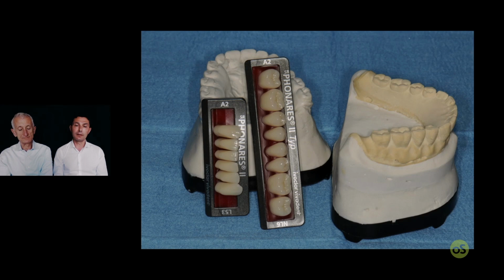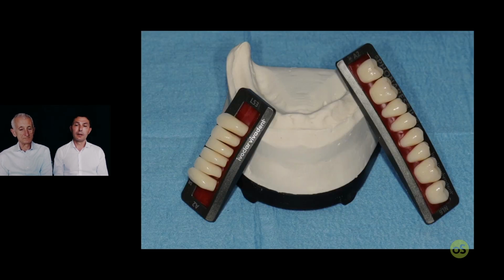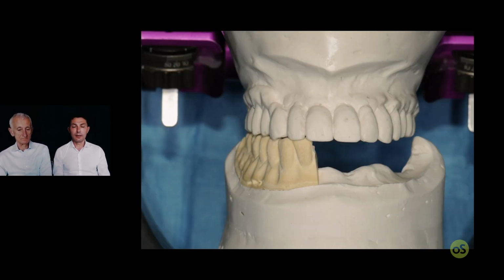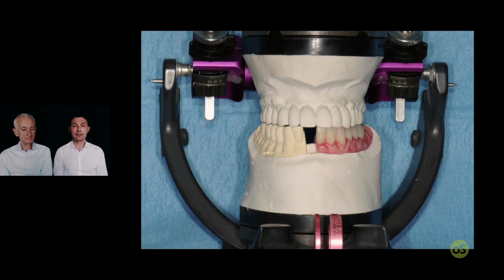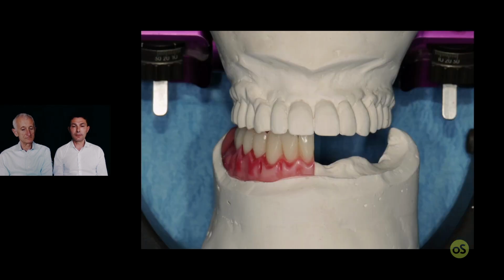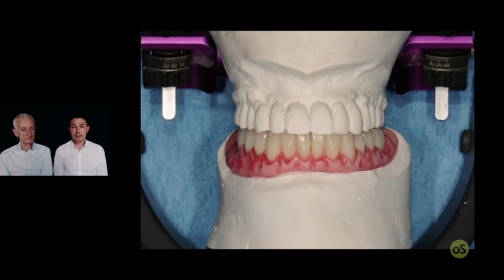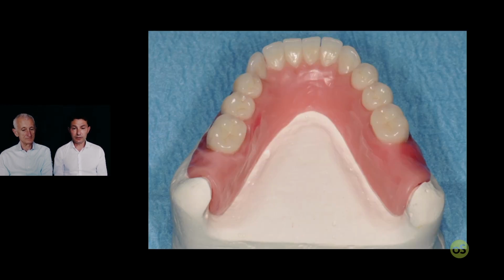And start again to place in the articulator, the upper, the lower, and it's time to select the new commercial teeth with the right shade and shape. And now I like to start to cut the plaster prosthesis in two parts, one in position, and I start with the other side. After, with the second part, more or less the setup is ready, and it's like a mobile prosthesis with the flange.